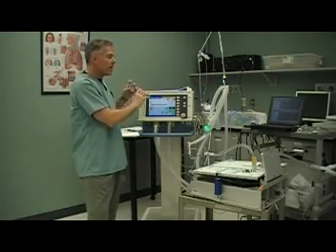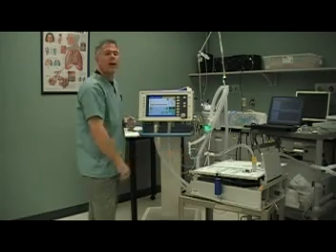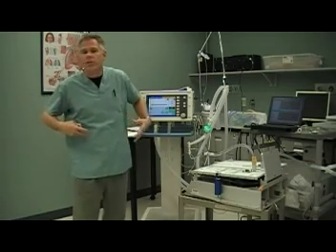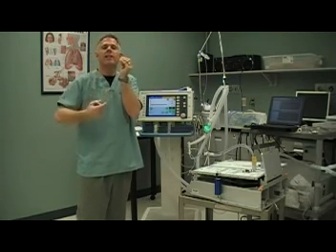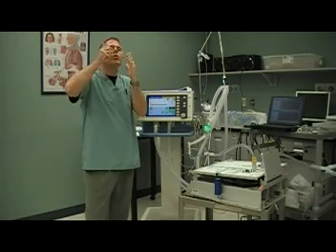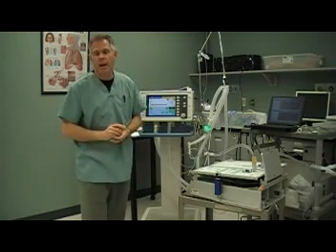This ventilator — the patient ventilator — has just your usual circuit on it, passive humidity, and I'm showing it here with an actual endotracheal tube in place. As the patient breathes in and creates negative intra-thoracic or intra-alveolar pressures, the ventilator senses that as inspiratory effort and kicks in to create mouth pressures to help decrease the work of breathing. The amount of mouth pressure created is the pressure support level, and pressure support levels are always above PEEP. That extra pressure at the mouth helps decrease the pressure gradient required for the patient to breathe in, thus decreasing the inspiratory effort of the patient.